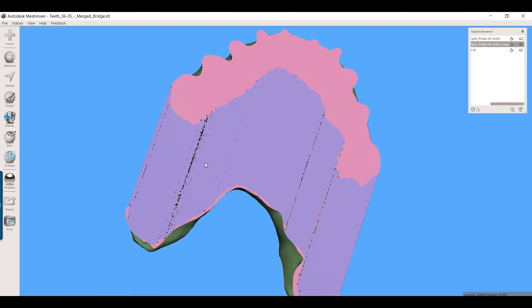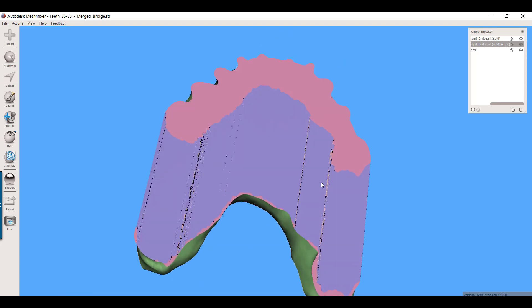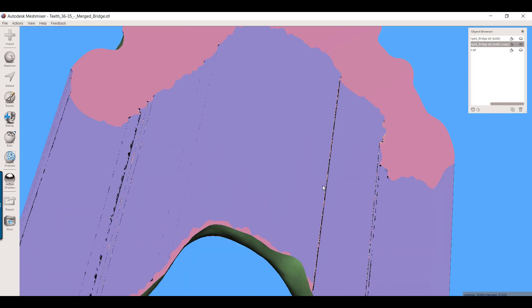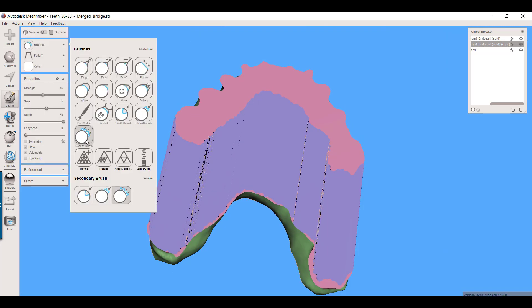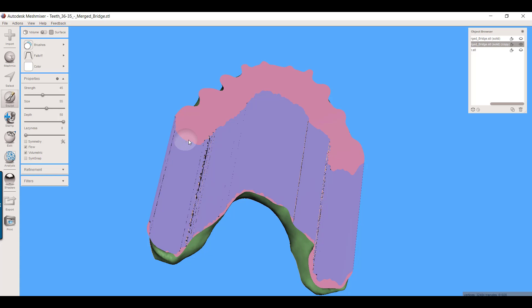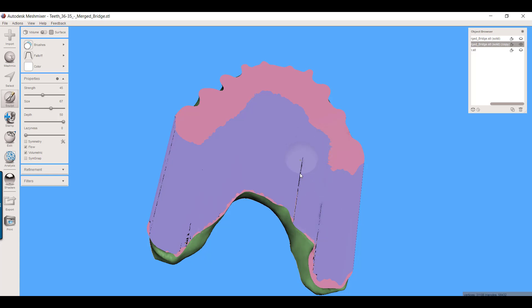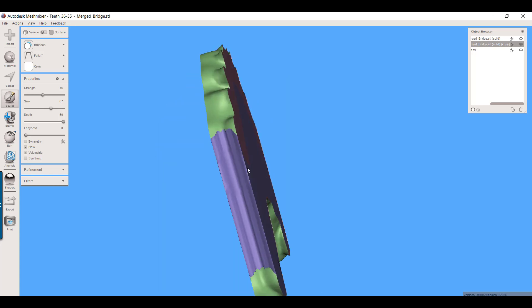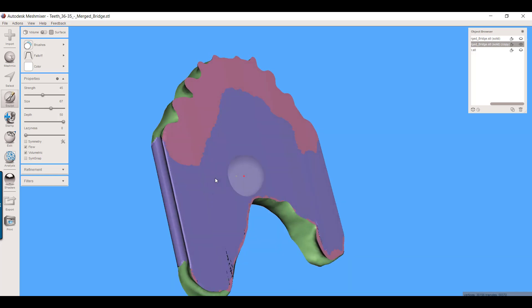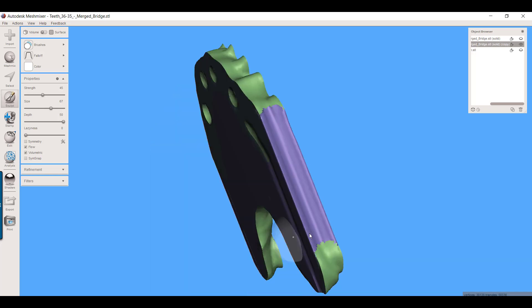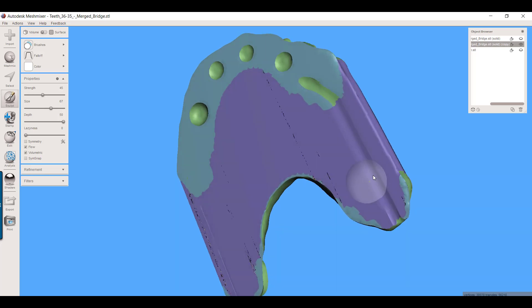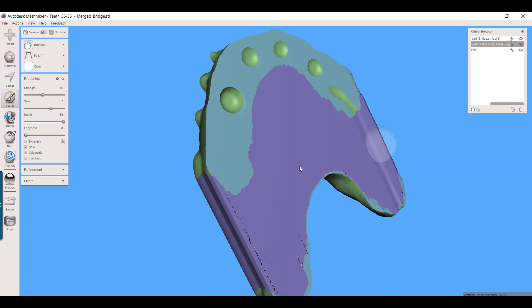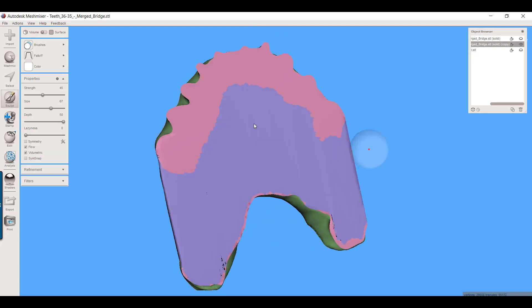Now when you do this, inevitably it's going to create some little areas of mesh that's crossed over one another. That's very easy to fix. Go to your sculpt tools, grab your robust smooth brush, make it real big, and just come smooth those off. You don't have to necessarily go all the way back into this area. You're mainly wanting it smooth with no folds in the mesh up here in the area where that subtraction is going to get done.